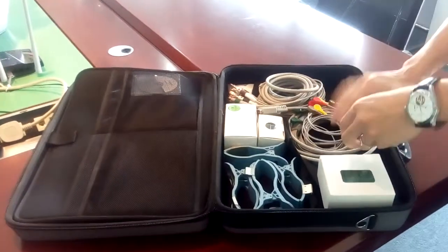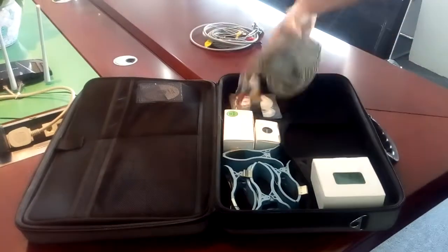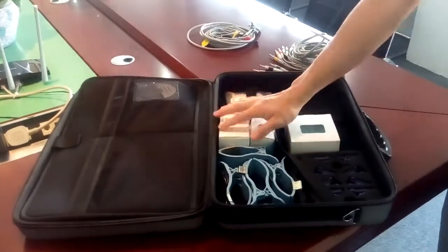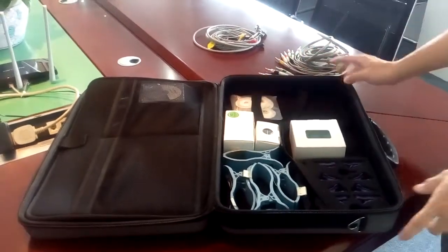In this bag you will find most of our commonly used accessories, for example different patient cables, different suction electrodes, different clamps, different adapters, and disposable electrodes.